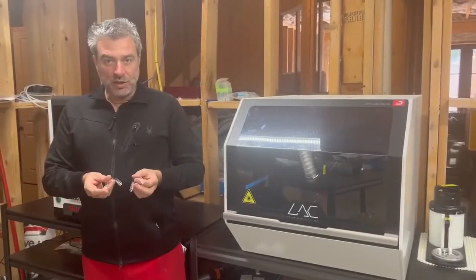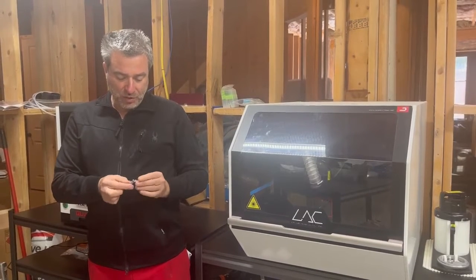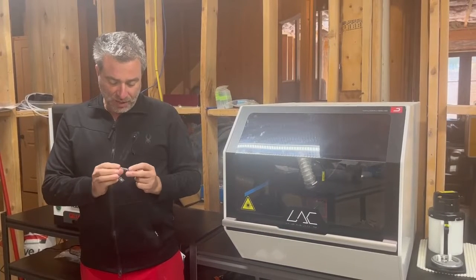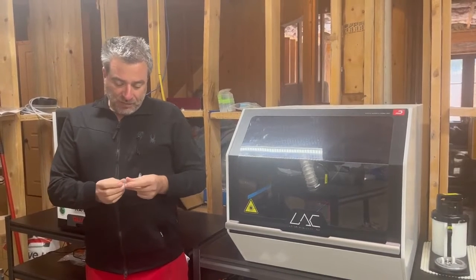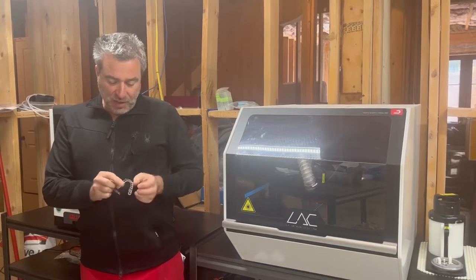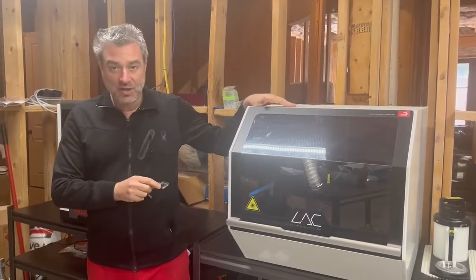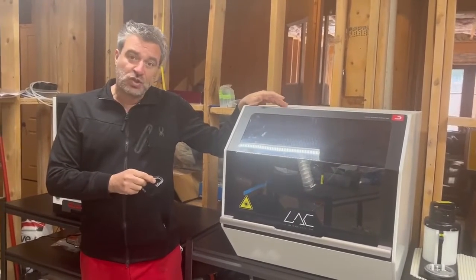Just wanted to bring to everybody's attention — these are the trays that we cut before on that machine, as we demonstrated. We'll zoom in in a second to show the trim line. These absolutely need no polishing at the end. I'm running my finger — we haven't touched it with any polishing wheel. It's almost as good a finish as this laser cutter over here, which is upwards of $40,000 and a lot slower.